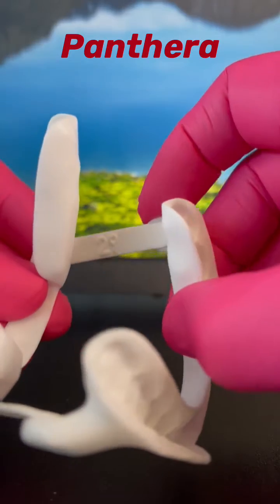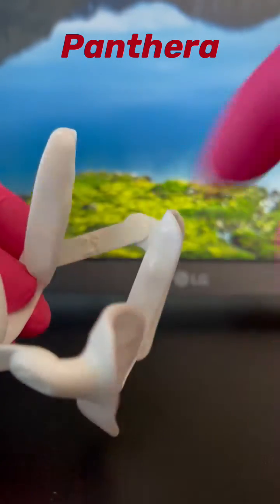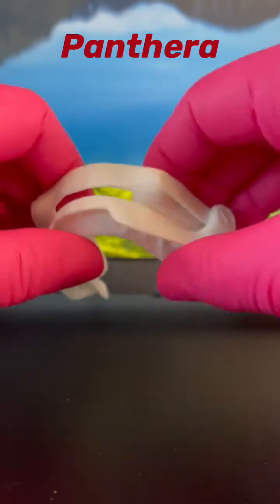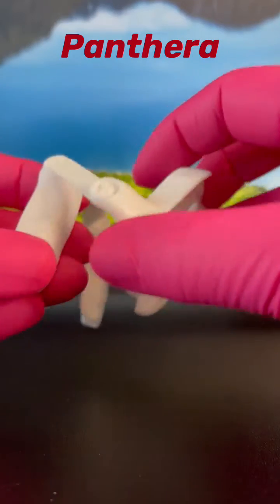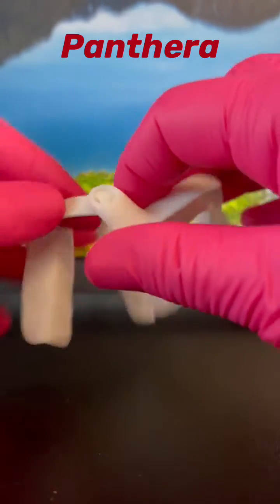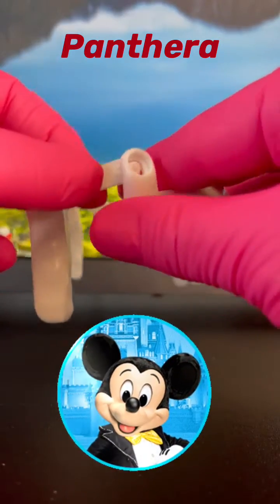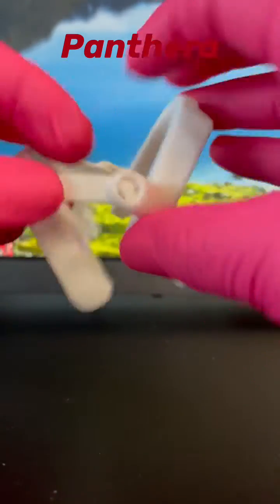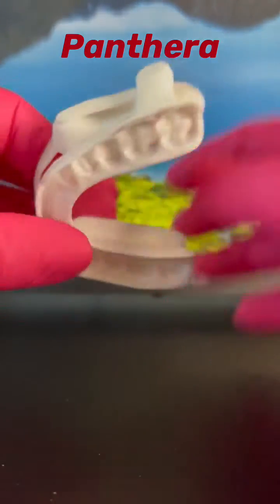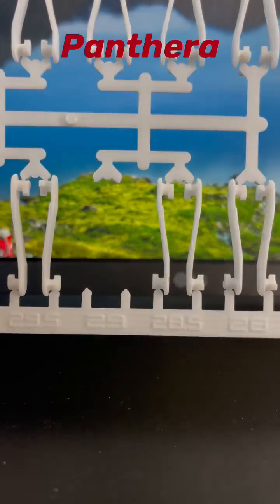To adjust this, you have to look at the number. This patient is starting at rod 29. To take it off, you go to the back of the rod and match the little Mickey Mouse ears — it's kind of like a puzzle. Match them up to pull it out, and then to put it back in, match them up and close it shut like that.